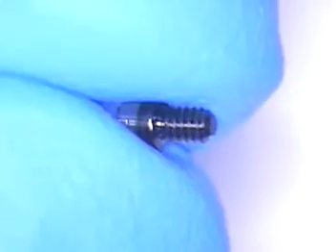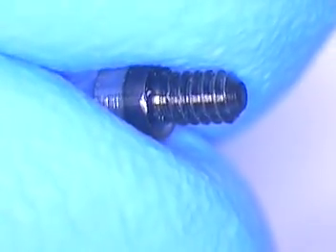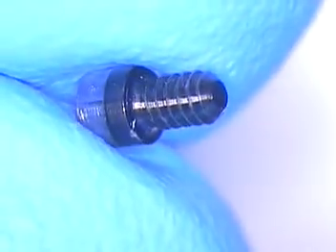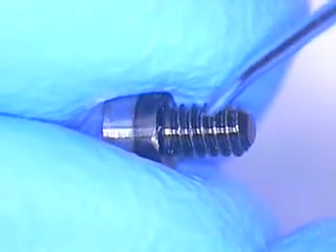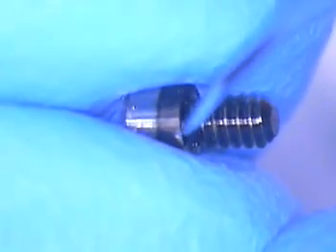This is a screw that was presented. I'm all the way up to 20 power on this. You see that little reflection right there on this screw? That's a nick. And here's another nick right there. So if I go to tighten that down, that's going to transfer. And look right onto the threads — you can see this area right here, see how these are all nicked along with that? Let me just change the lens cover here and see if I can point that out a little better for you.